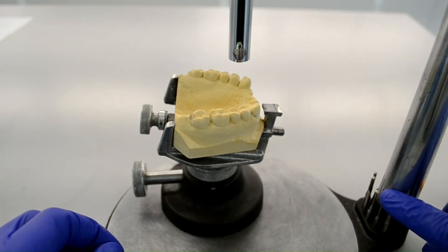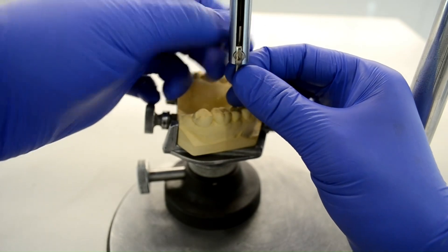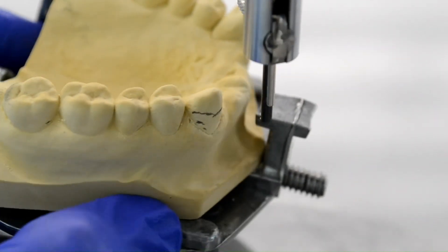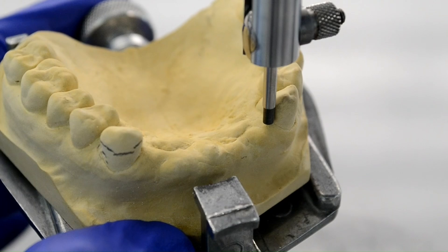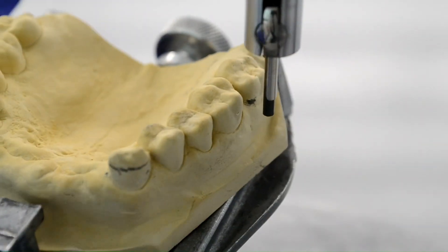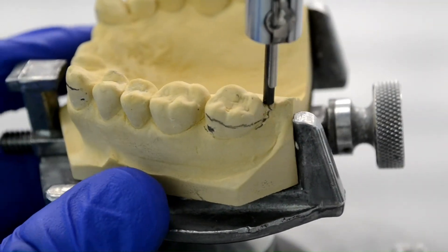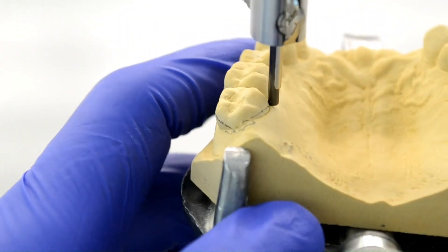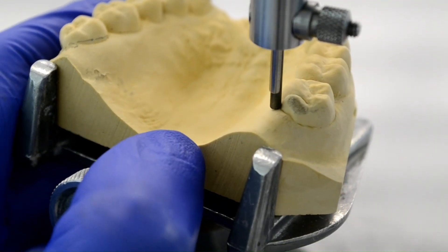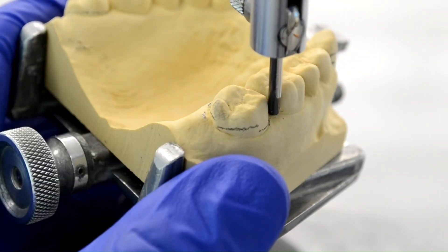Now that we're done identifying all the different undercuts, it's time to draw the survey line. This is done using the lead and the metal sleeve, which are both attached together and then attached to the mandrel. To correctly draw the survey line, we're going to ensure that only the side of the lead contacts the tooth and not the tip. The side of the lead is rubbed against the highest contour of each tooth and that leaves a line called the survey line. Anything under that line represents a degree of undercut. The left hand grips the base of the table to move the cast around, and the right hand moves the mandrel up and down to ensure that only the side of the lead contacts the tooth.